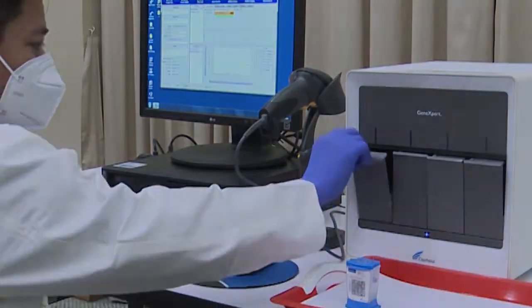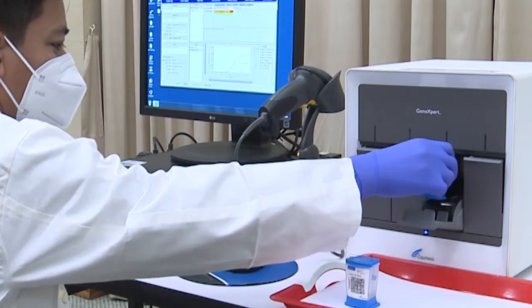Firstly, except for the stuck cartridge, the other cartridges must be disposed of properly.